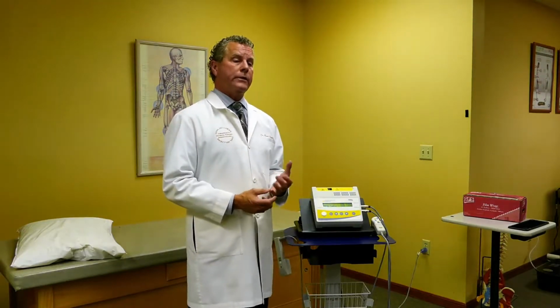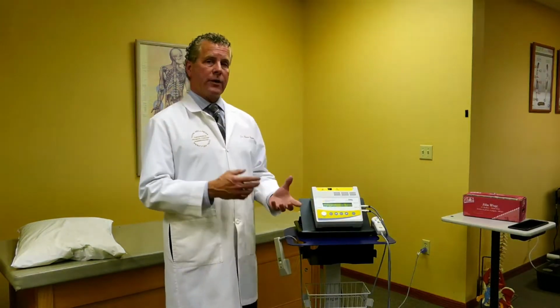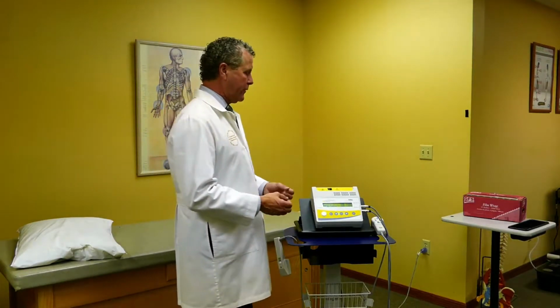I think the biggest thing is some of the research is showing that acute pain typically we respond about 80%. Chronic pain is typically somewhere in the low 70s. So what I tell a patient, if they're acute and their pain is at an 8, and I start treating them, I tell them that we should have significant improvement. Somewhere around 80% of the VAS of 8 is a reduction of about 6 points.